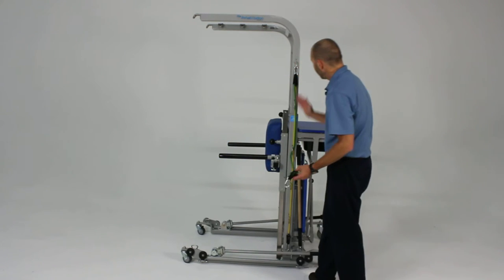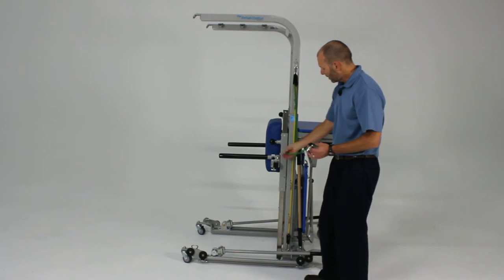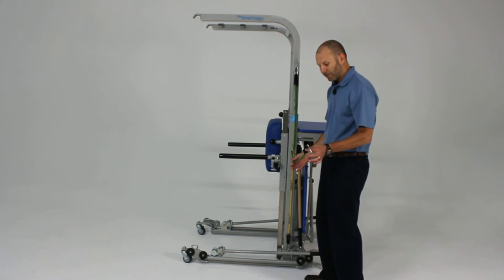By wrapping around any of these or through them, you can adjust angles, lengths, and distances provided by each of the resistance cords.